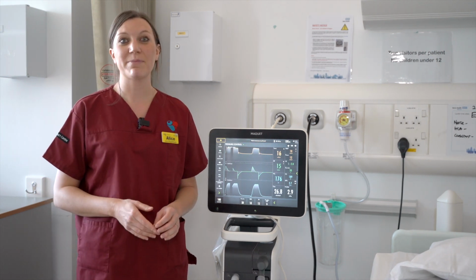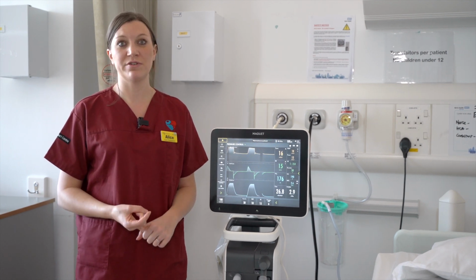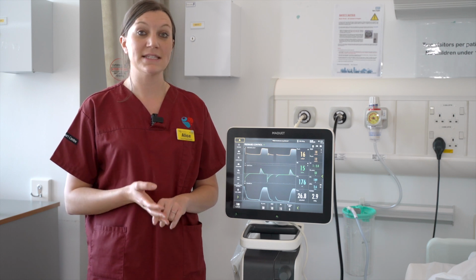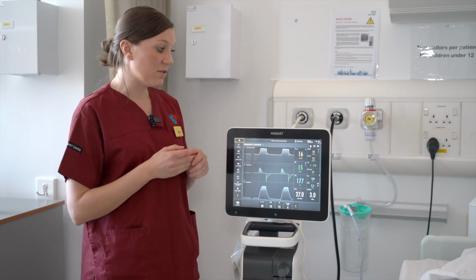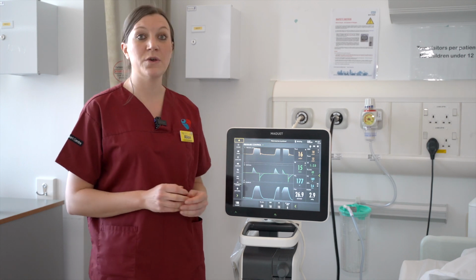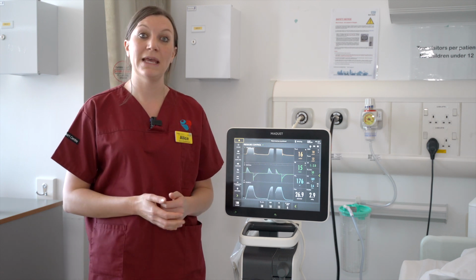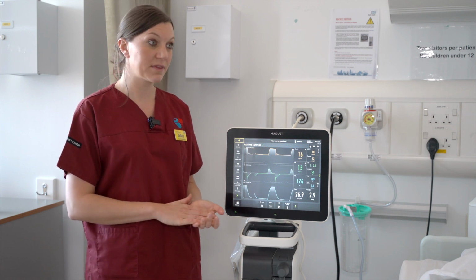So just to recap, in terms of the main points of your ventilation, a key thing that we want to ensure is lung protection and a lung protective ventilation strategy. So that is ensuring that the tidal volume is at 6 mls per kilo of predicted body weight, that your peak airway pressure remains less than 30, and that if you can identify a problem, you call for help from the ICU team as needed, and also ensure that your PEEP remains high and in line with your adequate FiO2.